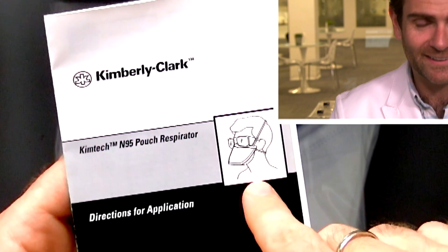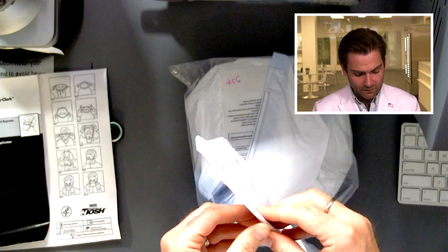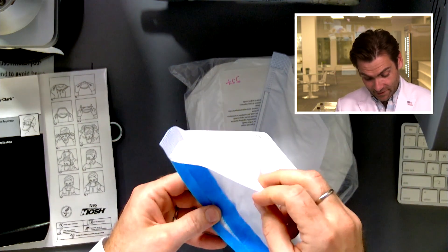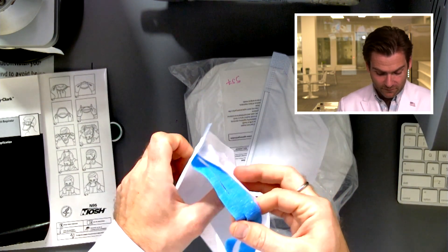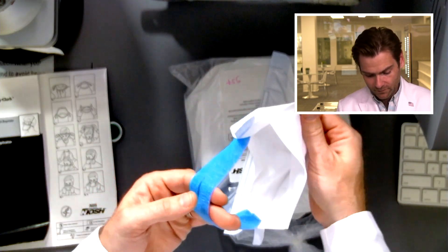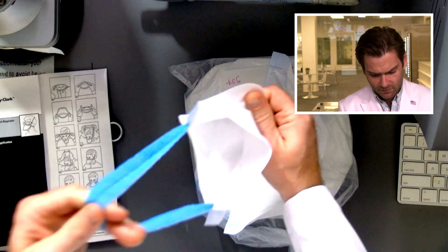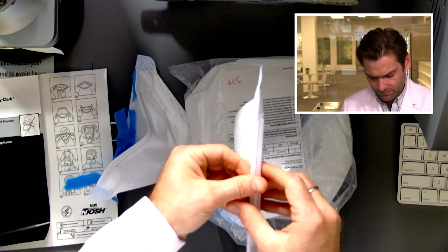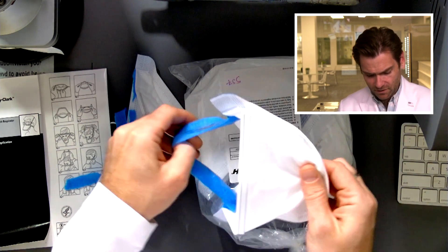This is a lot like the ACI one we just saw — it's exactly the same. The ACI was put together a little bit better. It looks like it probably breaks if I pulled it, but not terrible. I don't think it's going to break on your head.